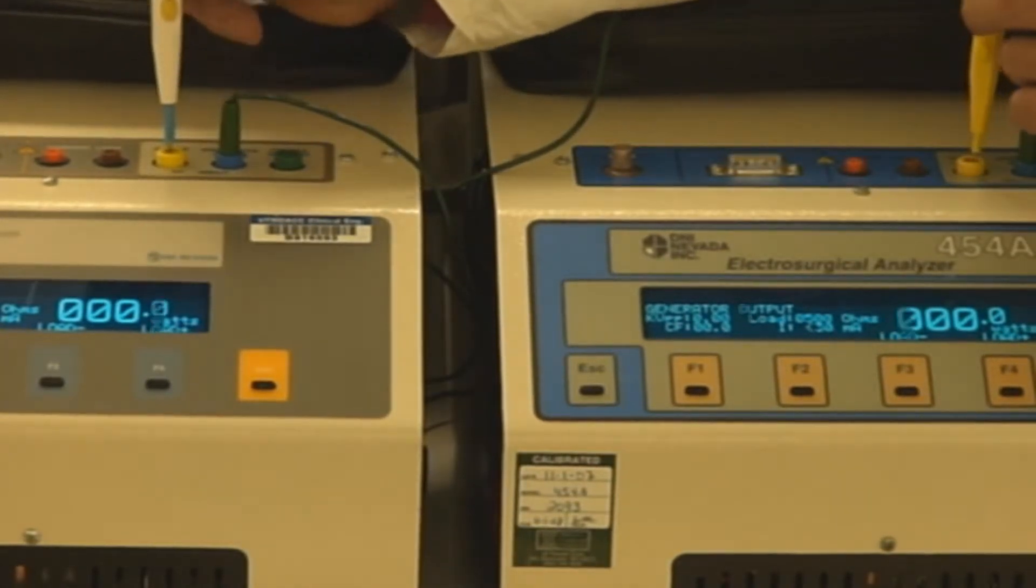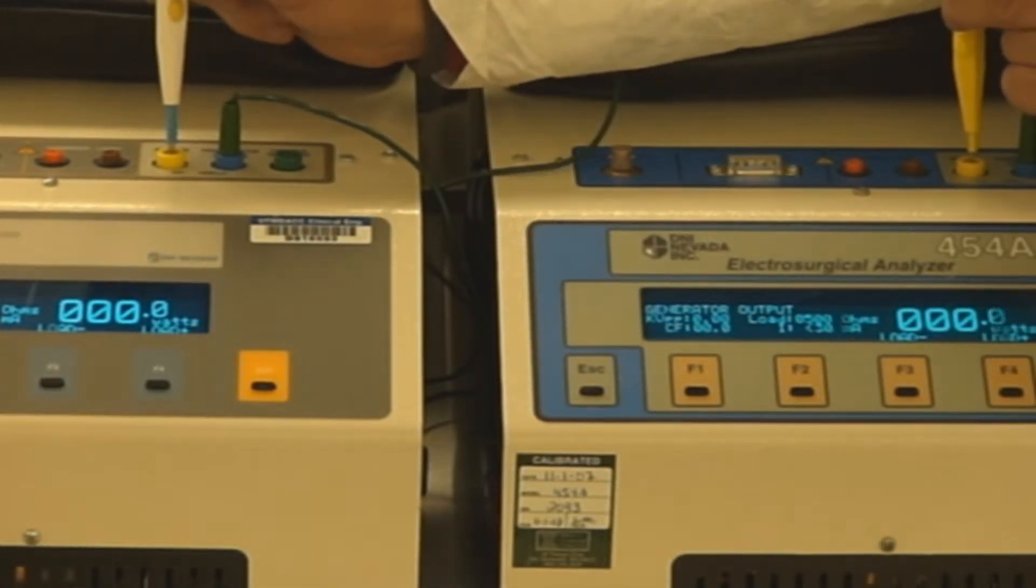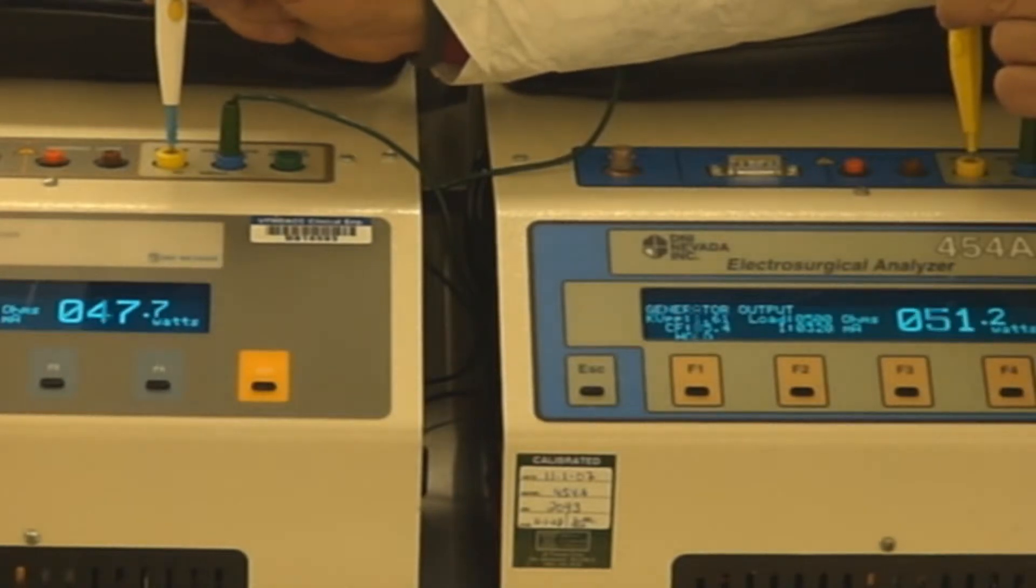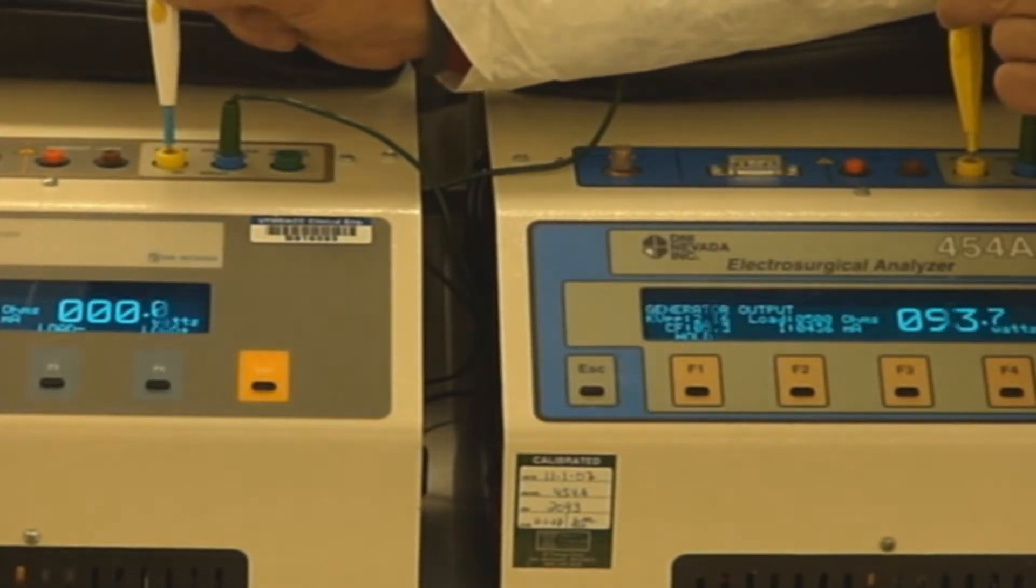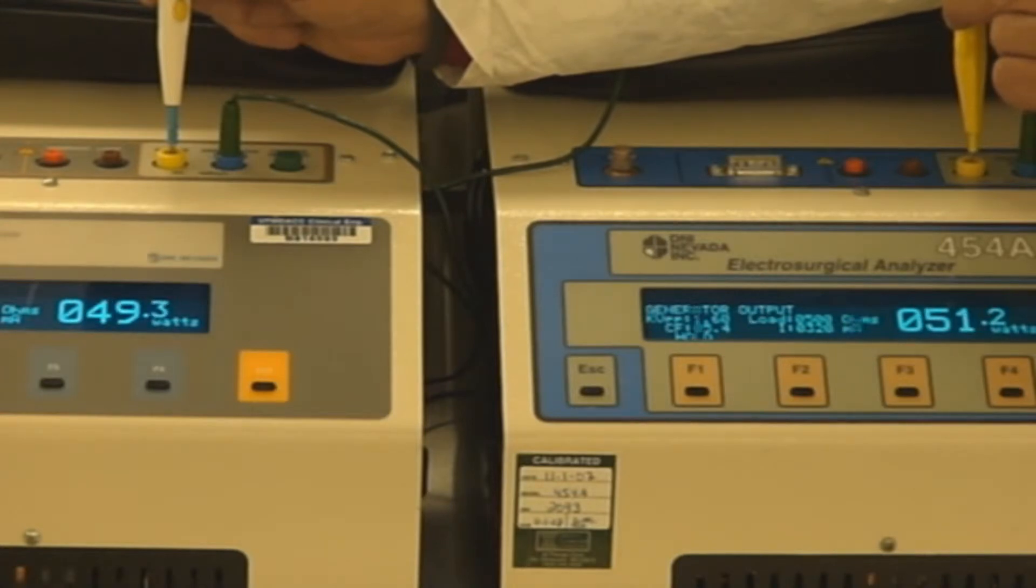Here we have effect four. We're going to go simultaneous. Here you have the split. Surgeon one drops out, there's the shift. Comes back in, there's the split. Surgeon two drops out, there's the shift. Surgeon two comes back in, and there you have it one more time.